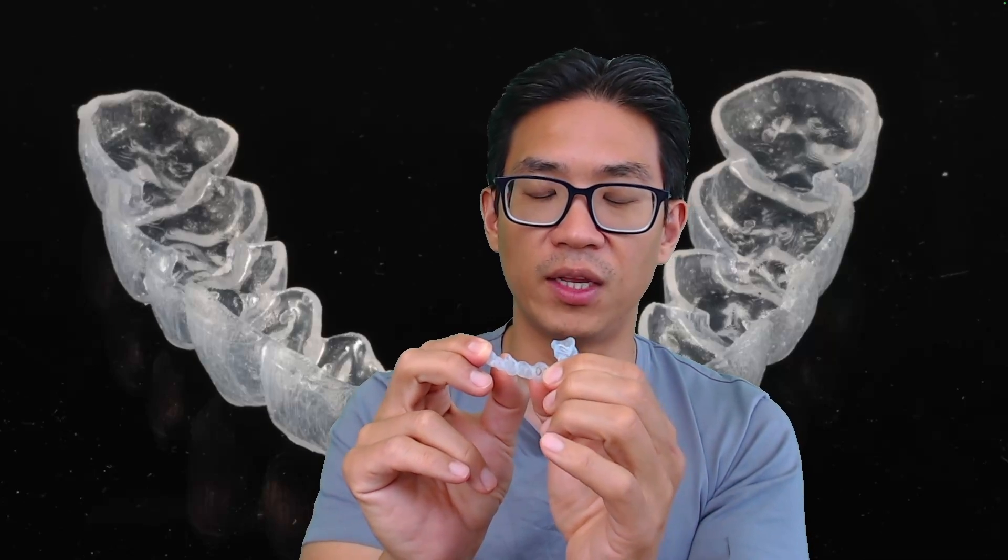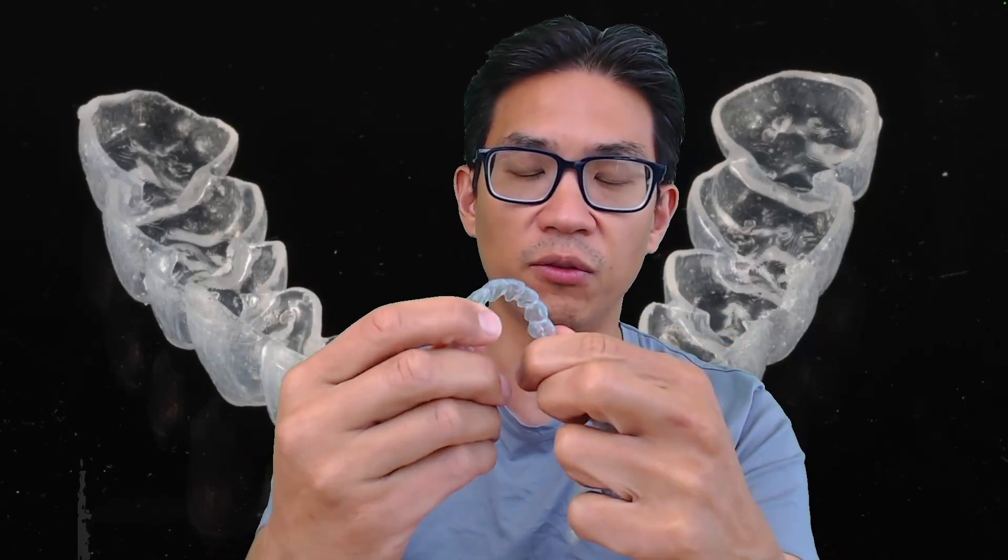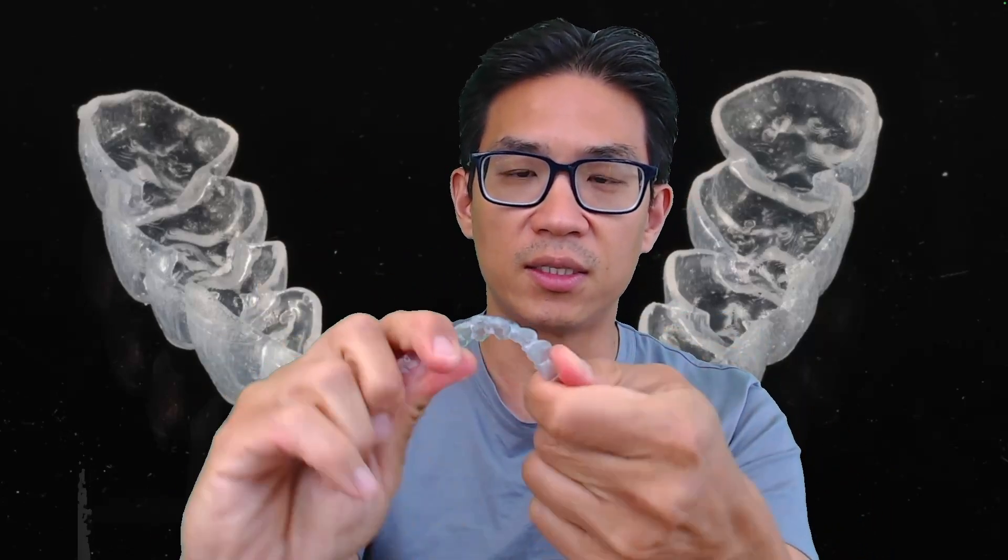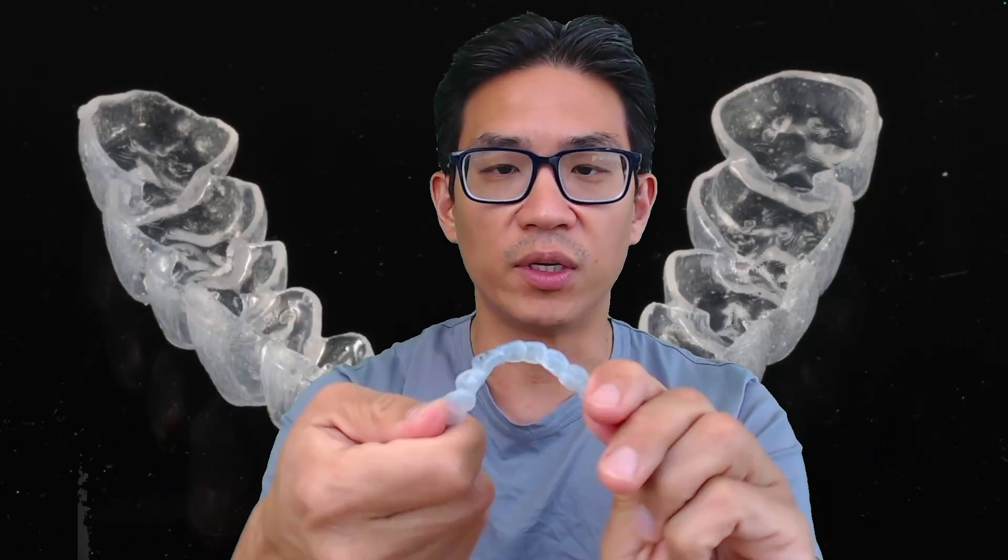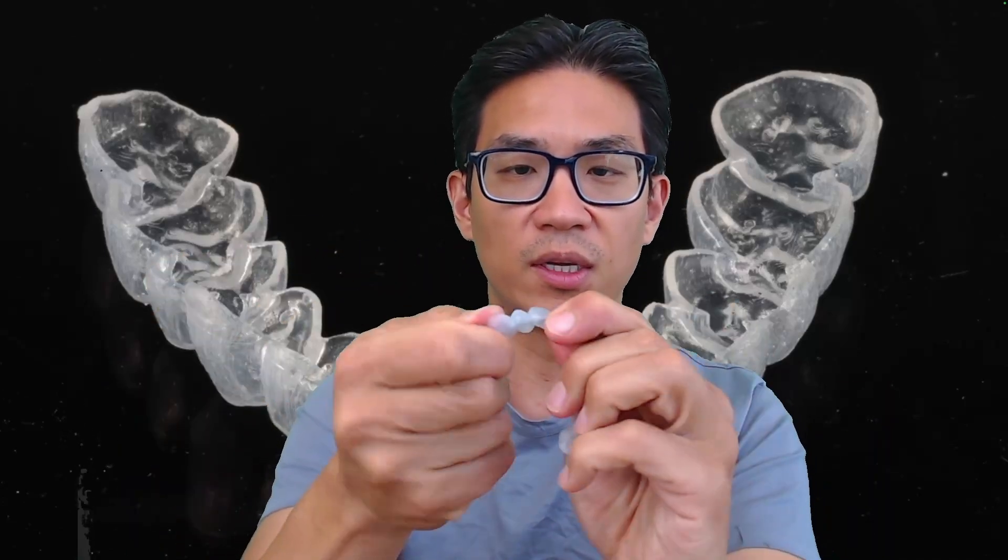It is a bit thicker, more stiffer than the bleaching tray material. If you decide you want to 3D print your trays, I just want to show you that it is possible. It is pretty durable. I've used this old one for about three to four whitenings and it's still holding up. It's malleable. This one's 0.9mm. To me, if I can 3D print my whitening trays or fluoride trays, I'd much rather do that.